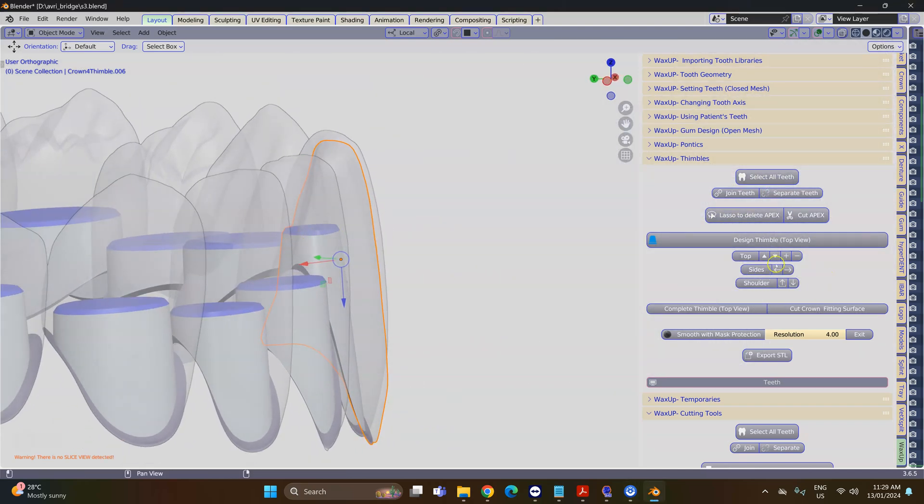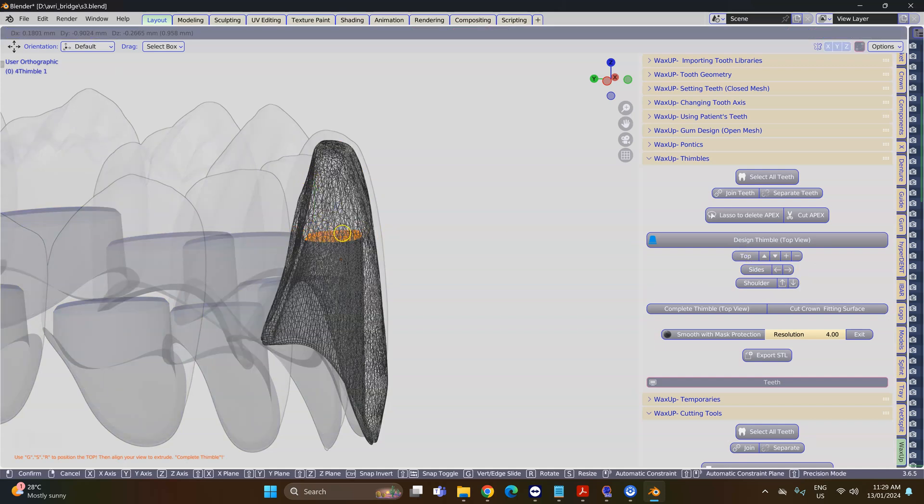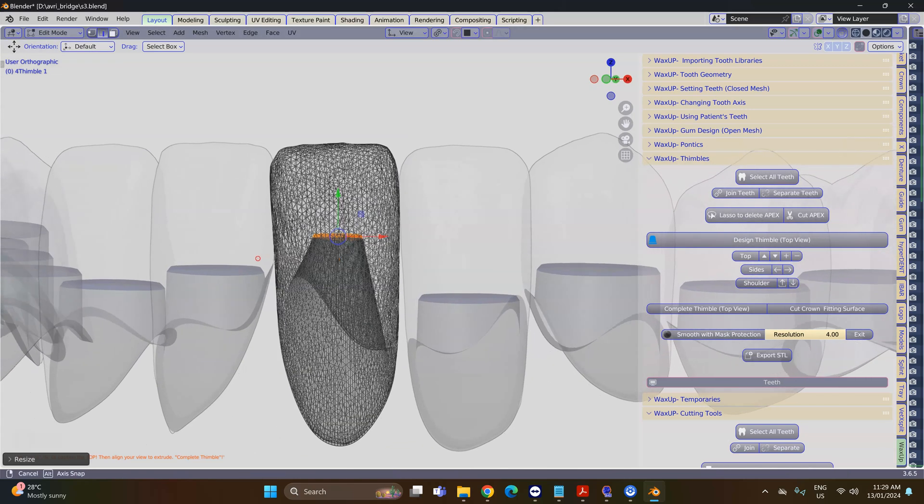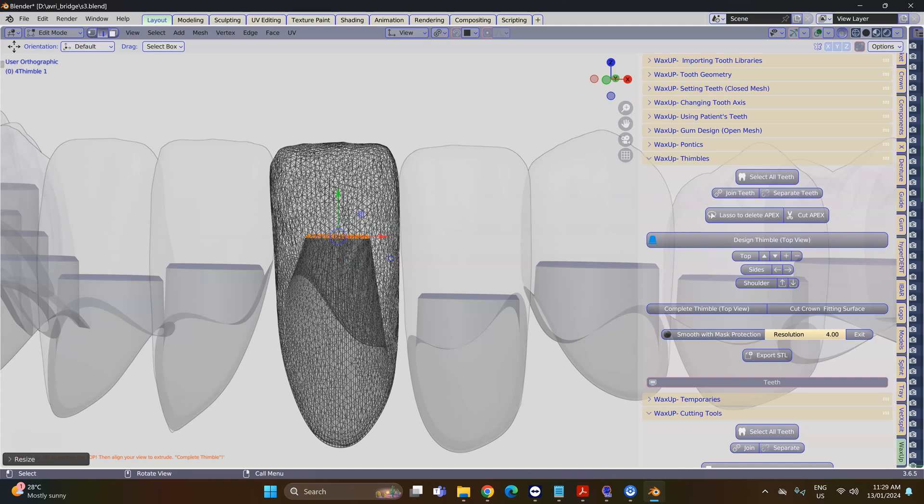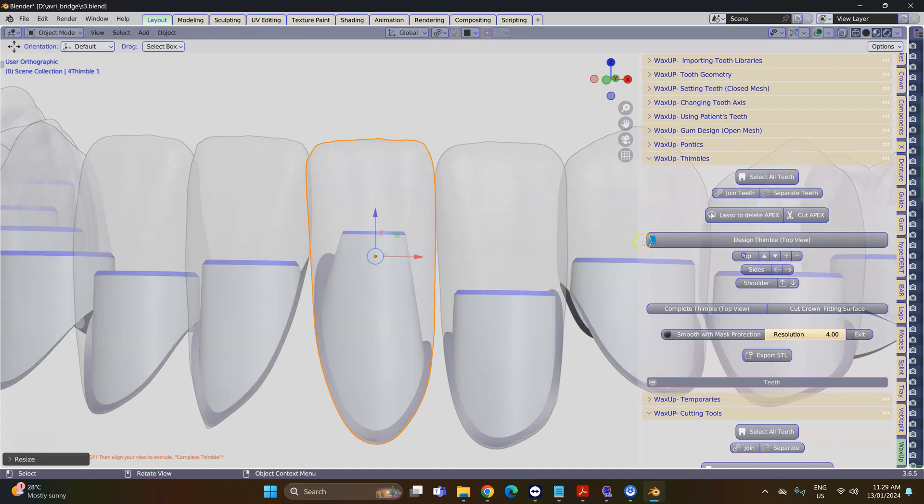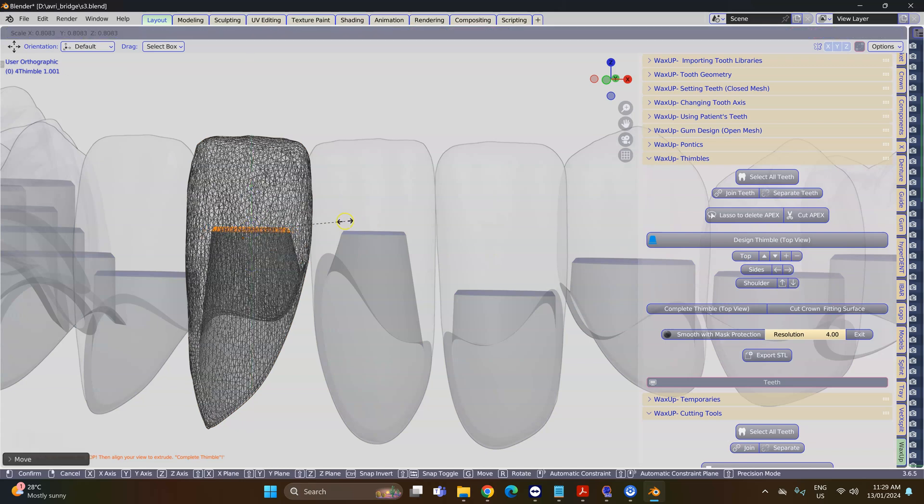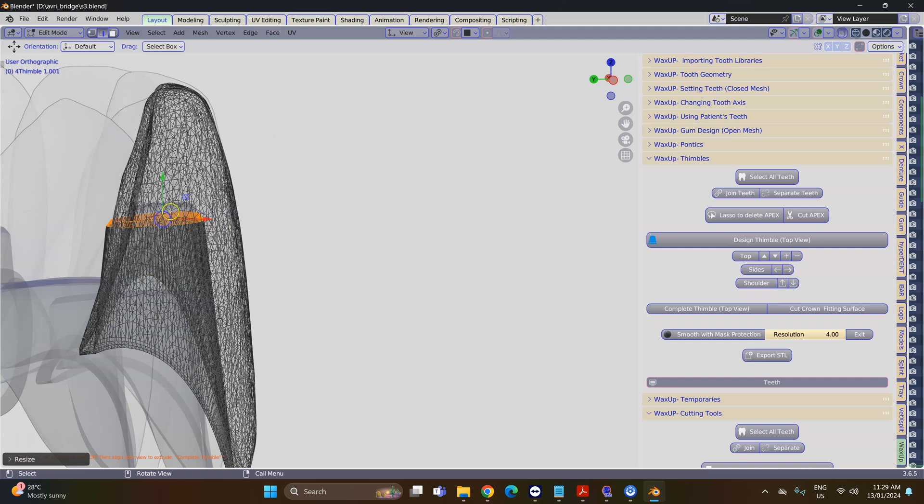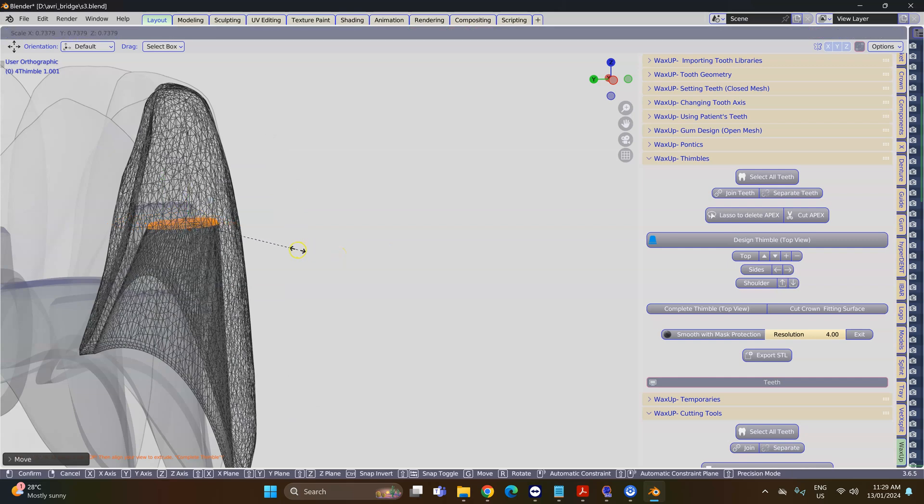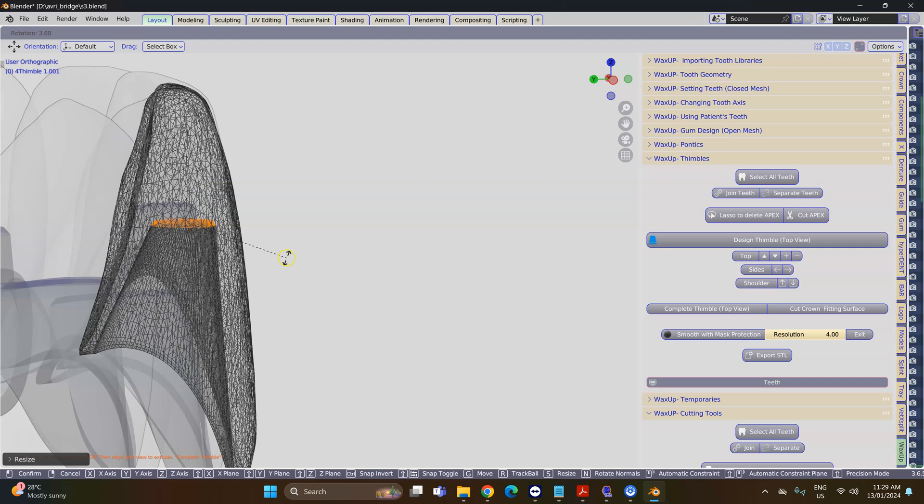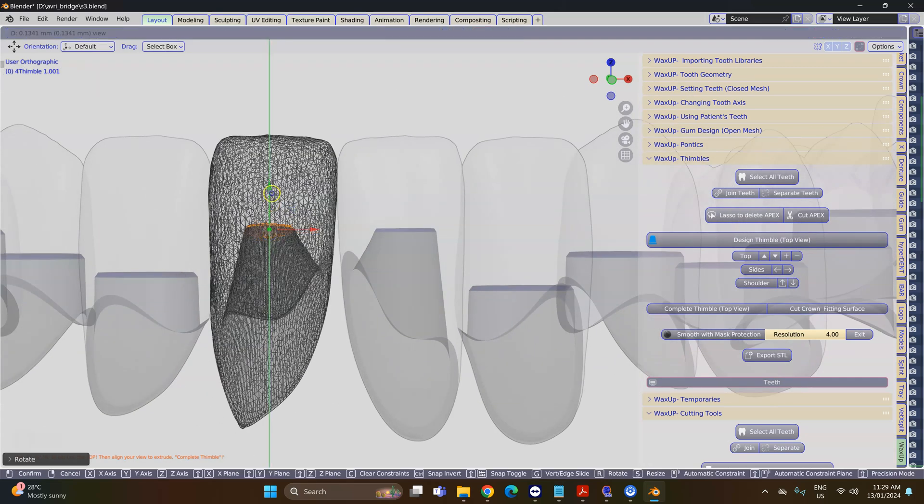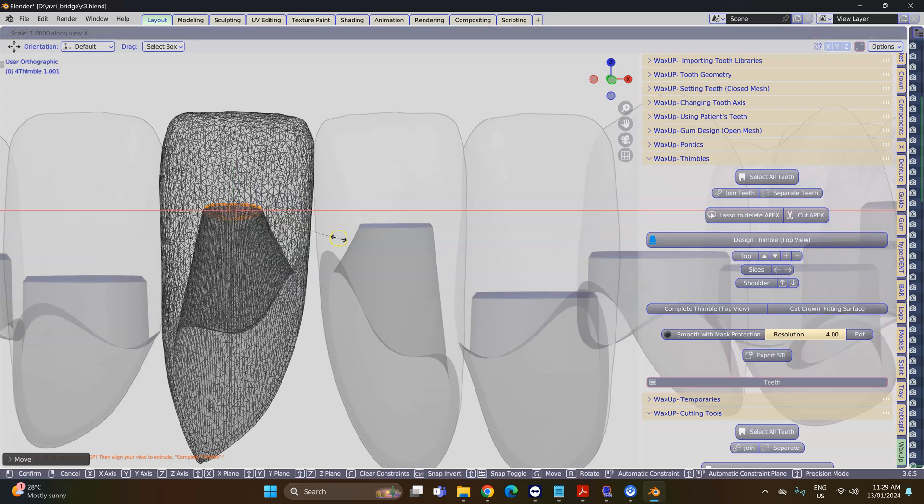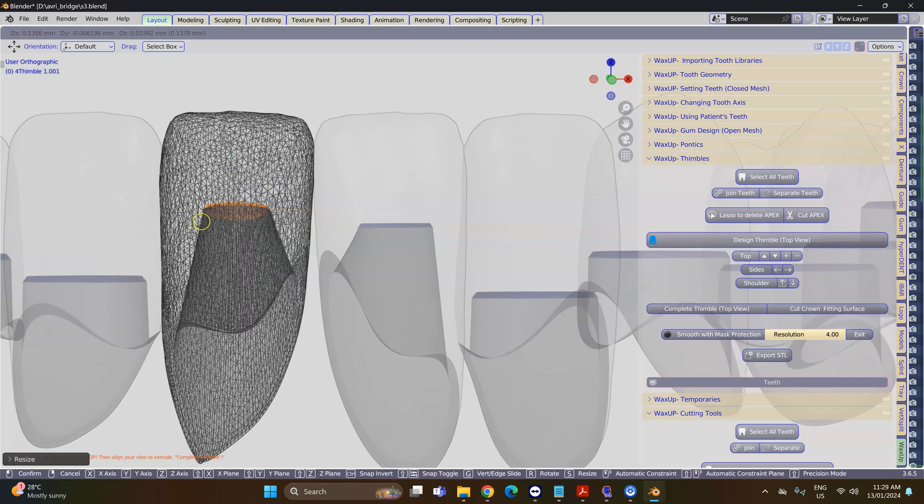But you can see that it's coming out on this side, which isn't good, so I'm going to click the top which will then edit it—goes into edit mode. We can use the S key, the G key, the R key, SX key, and then we're going to do all of them to get to a good preparation using the G key, the SX key and the R key to rotate. We're going to move through each and every one of these teeth to get a good thimble.